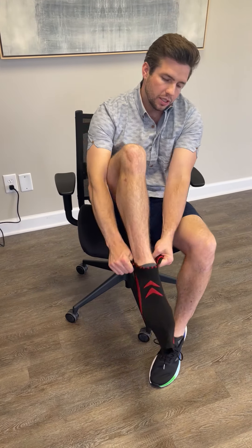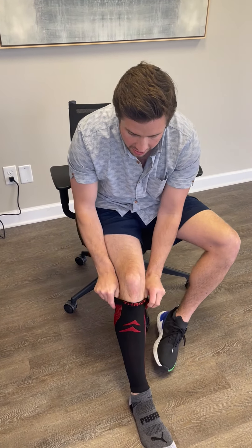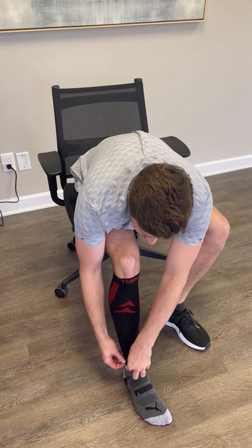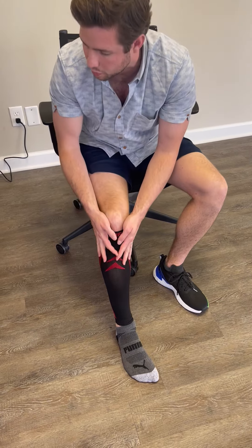It's really good if you have any kind of irritation with the straps. For me, the hair on my legs tends to rub against the straps, and that can be a little bit uncomfortable. So this calf sleeve is actually a great solution. It's really breathable and the compression feels nice as well.